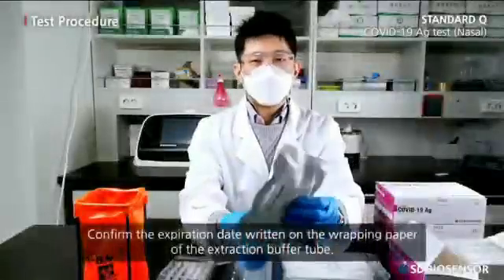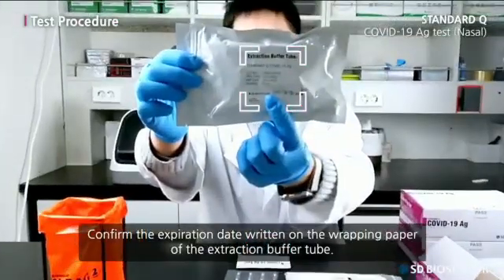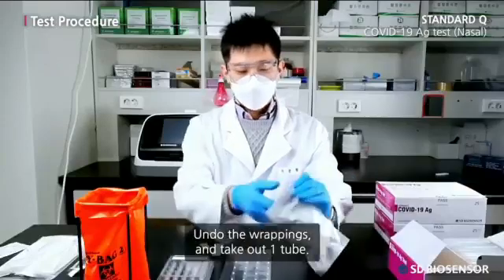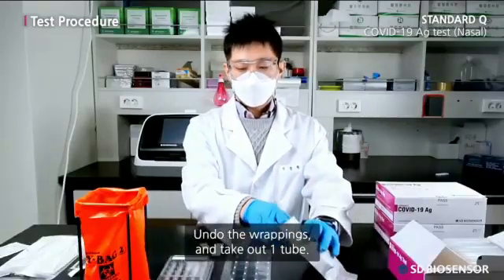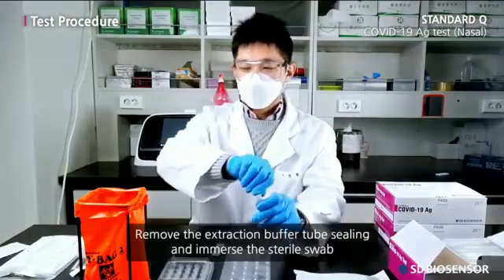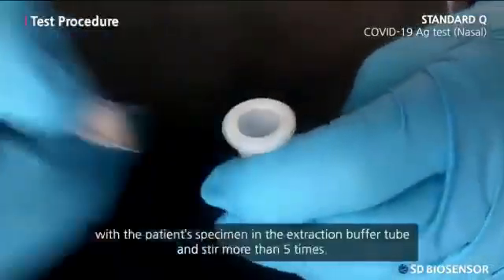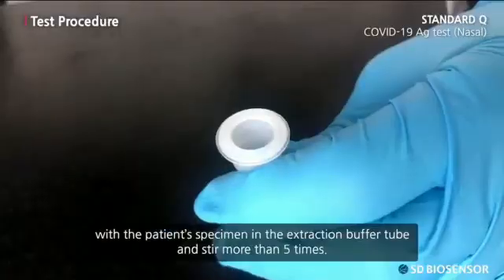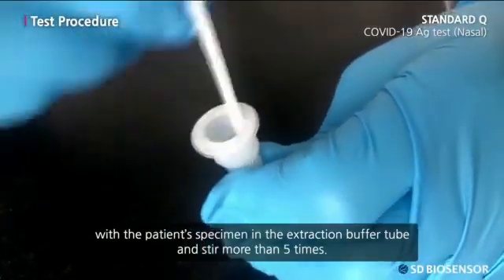Confirm the expiration date written on the wrapping paper of the extraction buffer tube. Undo the wrappings and take out one tube. Remove the extraction buffer tube sealing and immerse the sterile swab with the patient's specimen in the extraction buffer tube and stir more than five times.